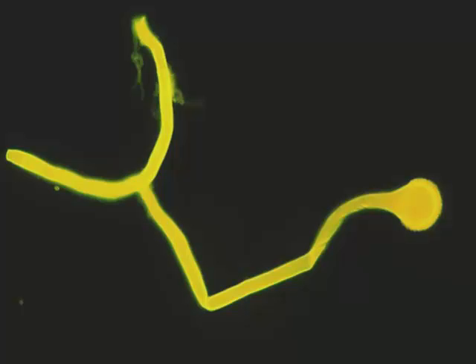Just on this day we were making this recording, I had an email from one of our former fellows who actually photographed something using his iPhone through the microscope, and he saw this very same thing in a specimen. It's not uncommon to find.